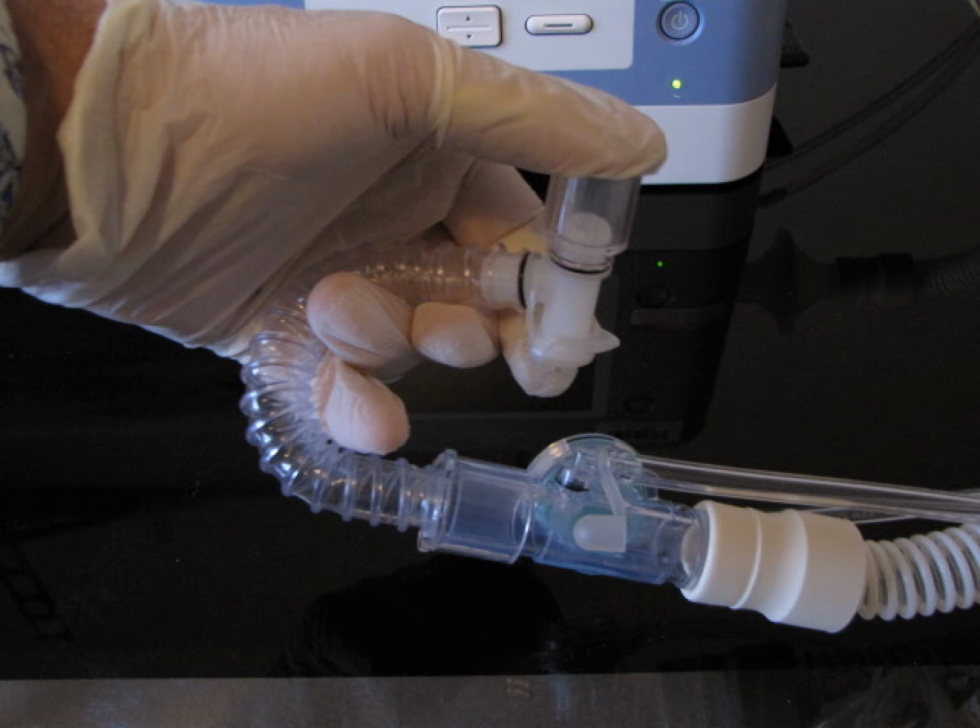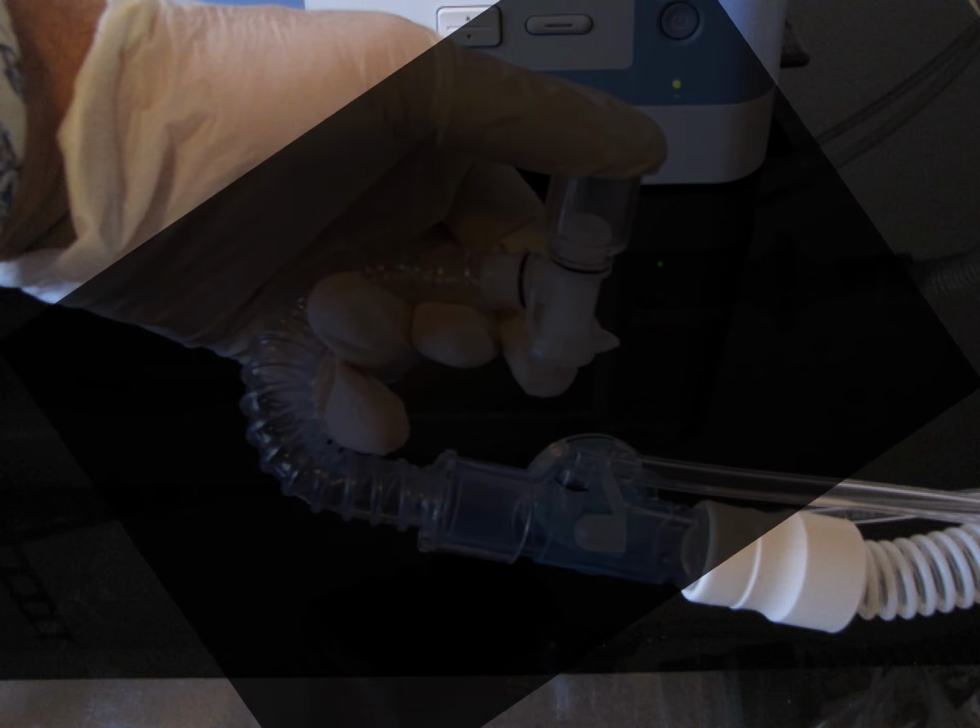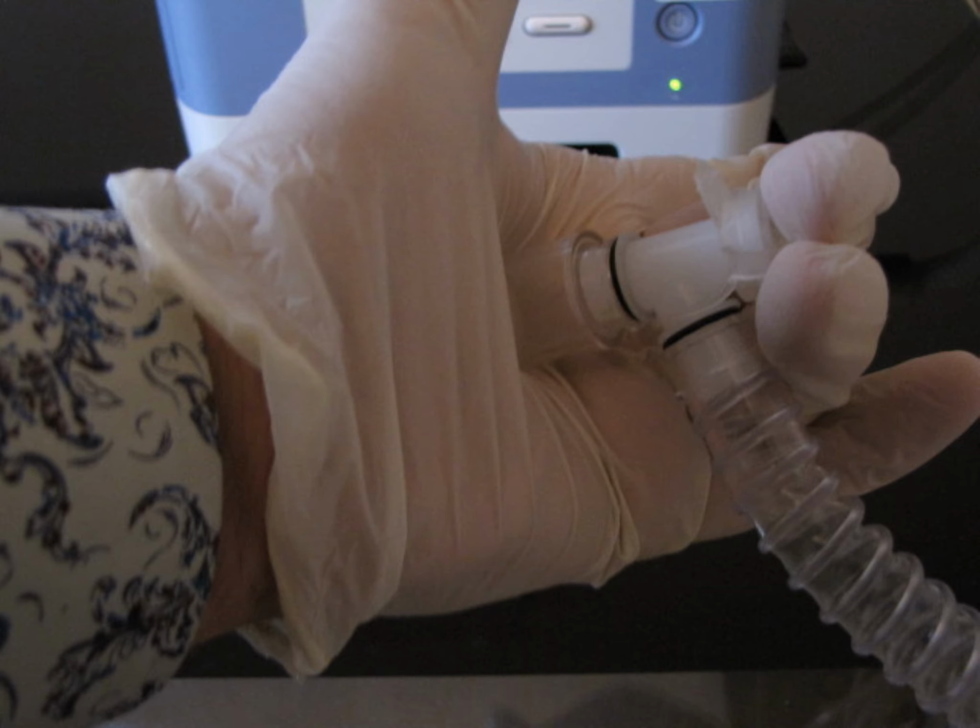During the active circuit leak test, the test will prompt you to occlude the end of the patient's circuit. When prompted to do so, use a clean gloved hand to occlude the end of the circuit, using your thumb. Alternatively, you may occlude the circuit in the palm of your hand. Either way, make sure you tightly block the end of the circuit and hold it until the test is over and you are prompted to unblock the circuit.